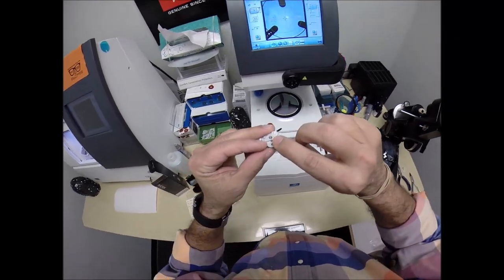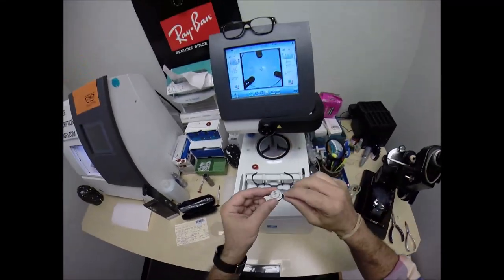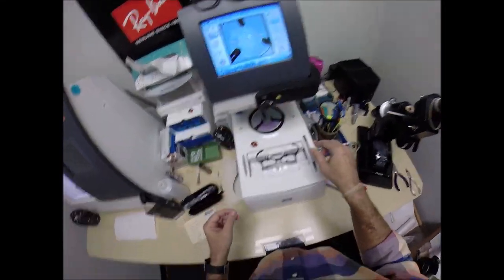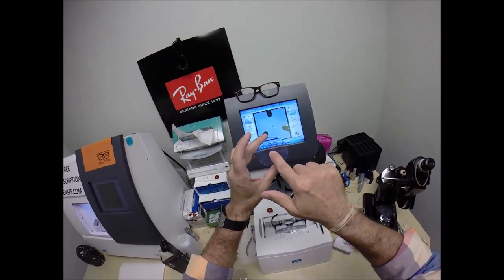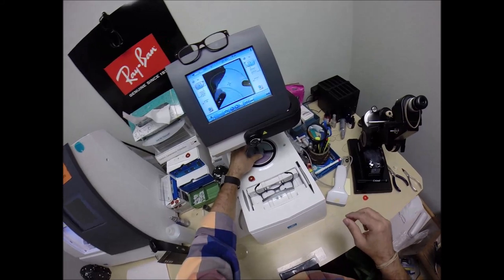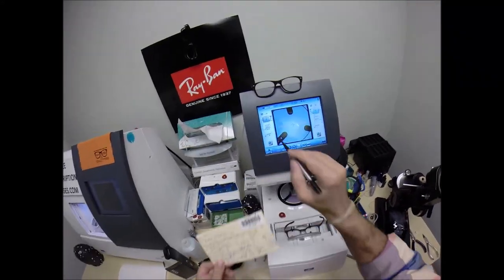Now on the back is a little silver button. That is a magnet. It's going to do its job twice tonight. It's going to attach itself to something magnetical there in the arm to hold that in place, and I've already taken the time to get your lenses prepped. That is the optical center. Those two tells me that it's oriented, and they're just perfectly. Let me enter your pupillary distance, which is 34 for the right eye. The computer starts at 32.5, so I'm going to tap the plus button a few times until we get to 34.